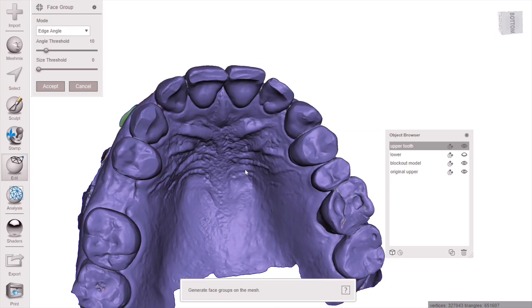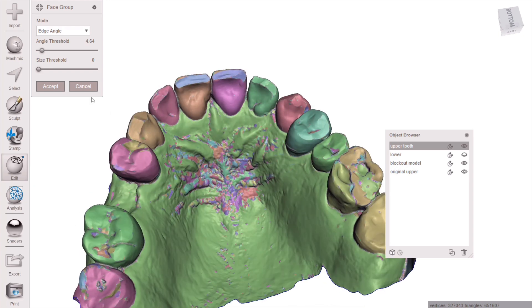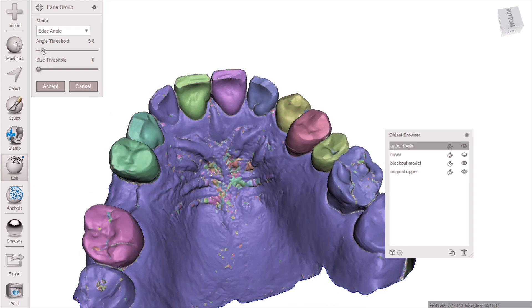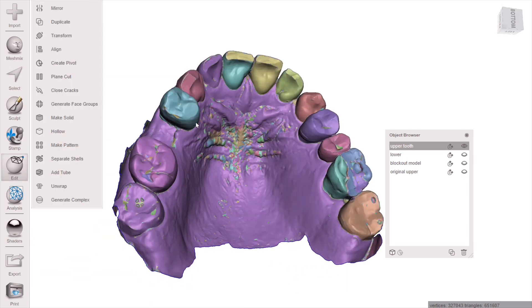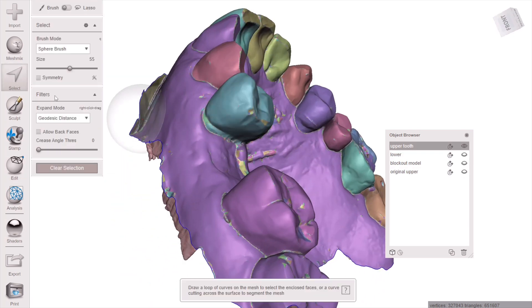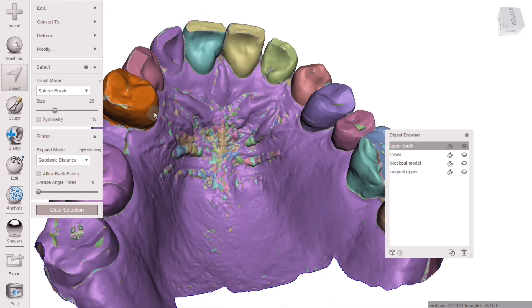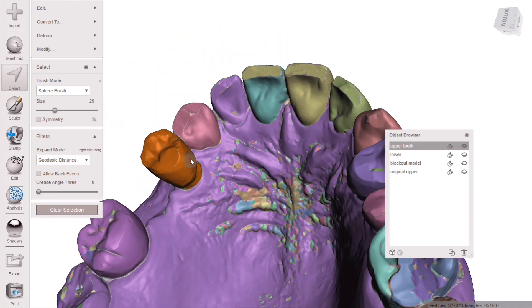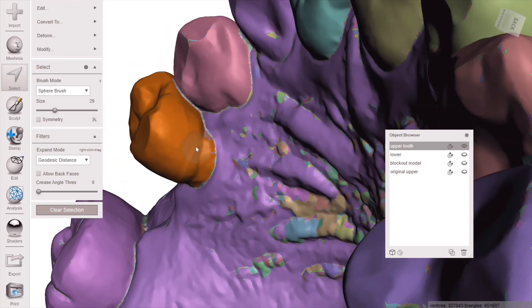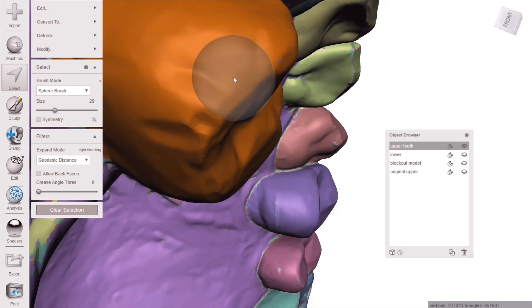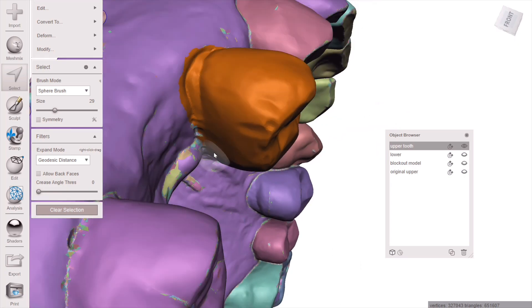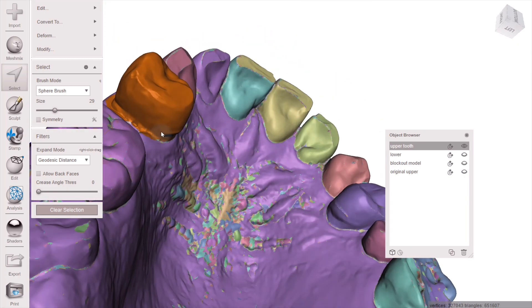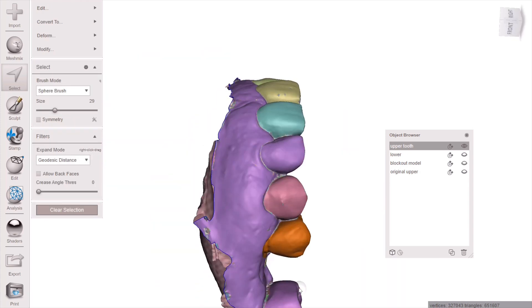Now we're going to extract the tooth and replicate it. First, go to Edit > Generate Face Groups, then play with the threshold until you can see mostly the tooth selected. Go to your shaders and drag a metallic shader on it to get rid of the color. Double-click the tooth that's already been selected, then come in with your select brush and fill in areas that need filling — you cannot have any little islands or space anywhere.